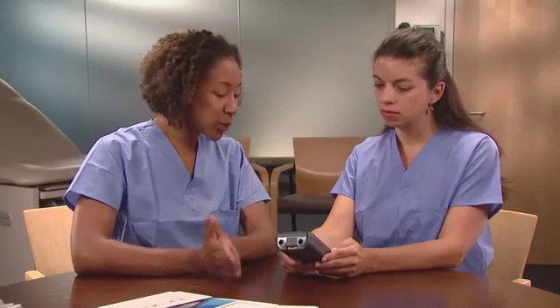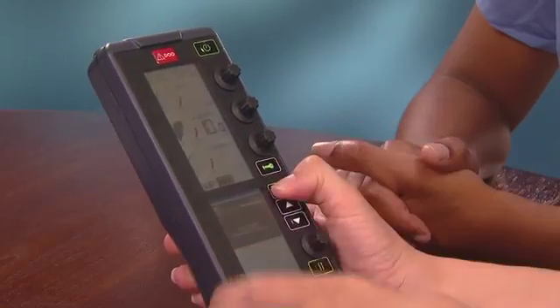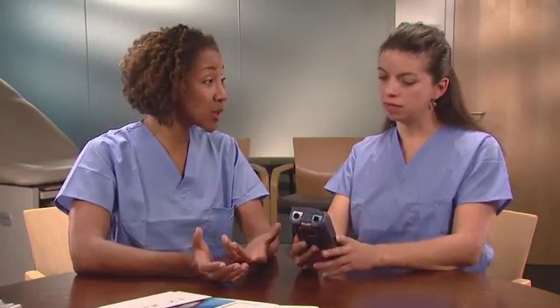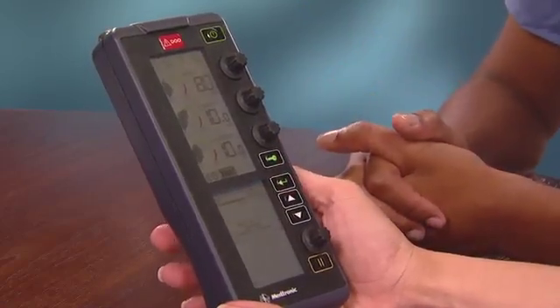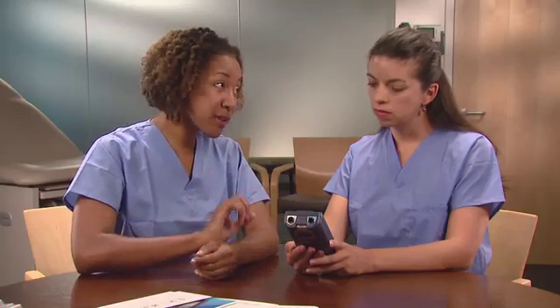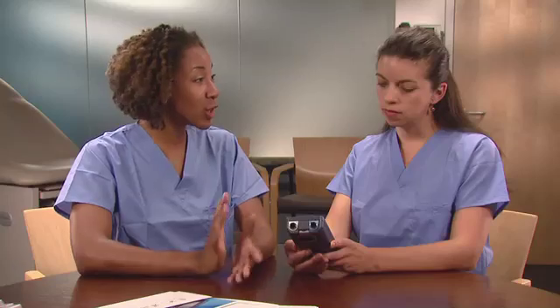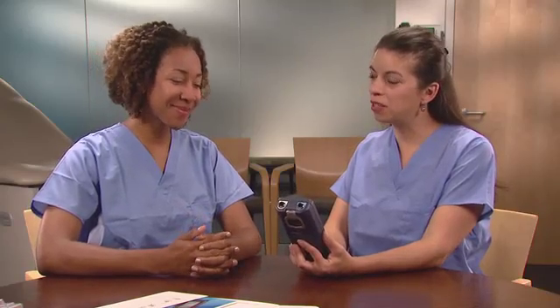Can I adjust the burst rate during delivery? Certainly. Just readjust the burst rate during delivery with the dial. So how do I exit this function? Once the Enter key is released, it reverts to program settings. Now to exit this screen, press the arrow to highlight back and press the Enter key. We have now seen all of the menus and learned how they can help you fine-tune a therapy. Don't forget that you can always deliver dual chamber pacing quickly by using just the top three control dials. It will be a great option for temporary pacing.